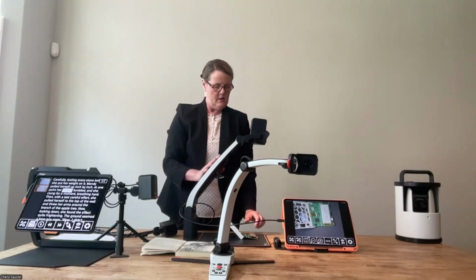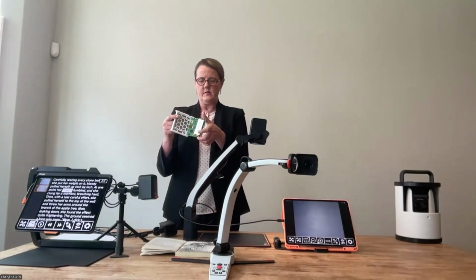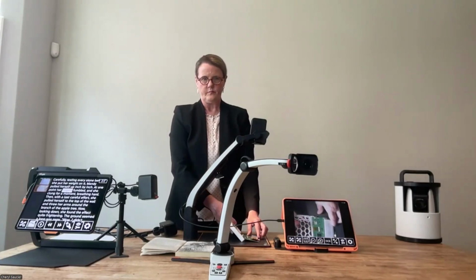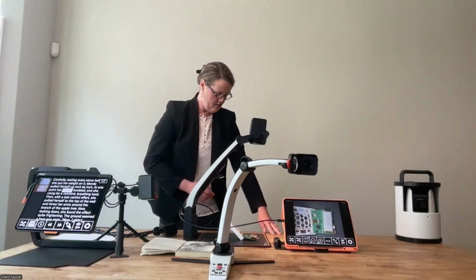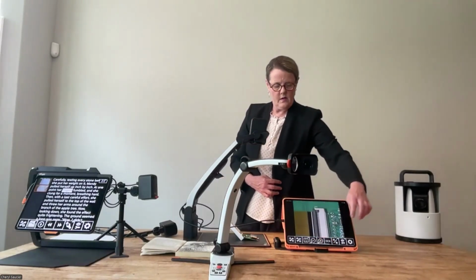So that is going to give you a wider field of view, a bigger space to be able to look at things. And it's going to be hard to appreciate because I'm a little bit far away from the camera, but what I have here on the surface is a little circuit board, tiny circuit board. So if I put that under here, and I come over to this iPad and magnify it. I don't know if you can appreciate how tiny the resistors are. It can read the copper trails on the circuit board, it can read the itty bitty numbers that I cannot see with my naked eye on the resistors with this powerful camera.